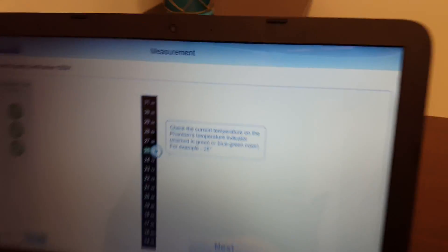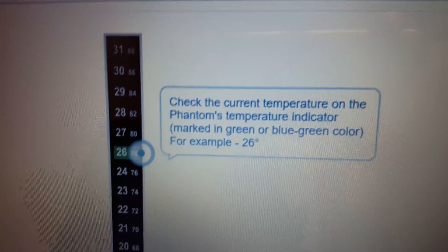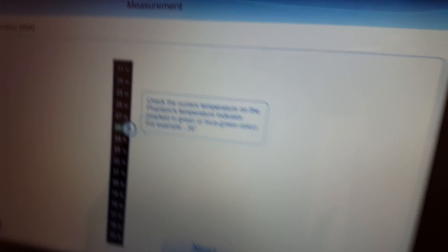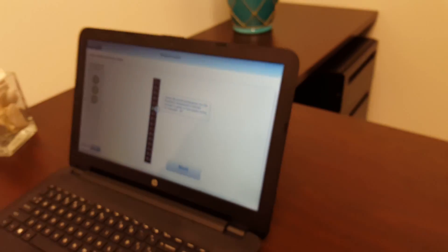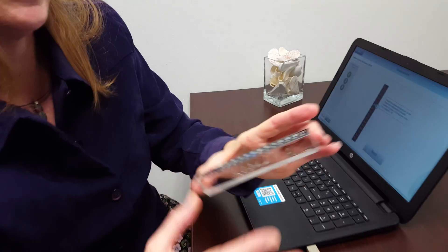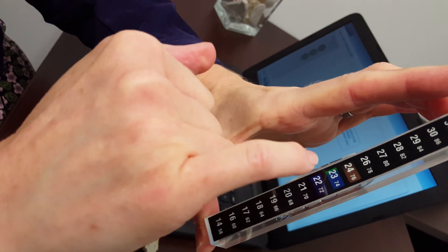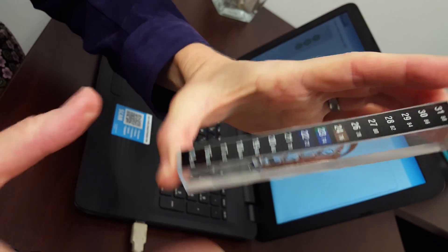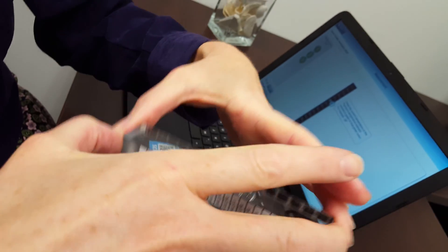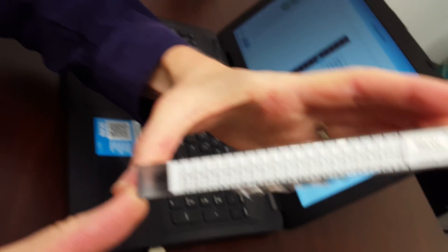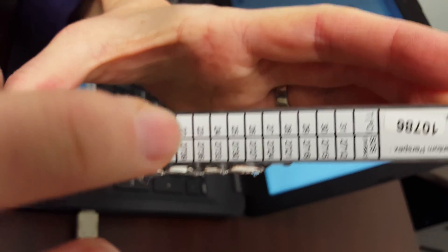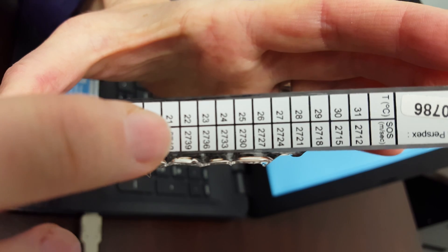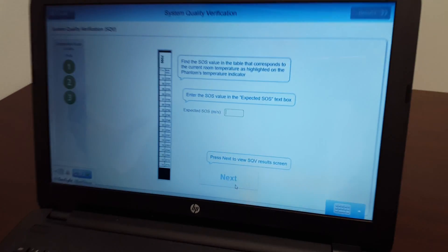So then you can press next, and it will prompt to check the probe. It lets you know to pick up the probe and check the blue-green color. There's the 23 Celsius, and so we remember that 23, and we look for the four digits corresponding, 2736 there, and that's what we're going to type in.